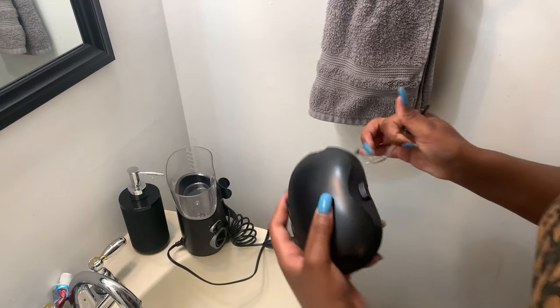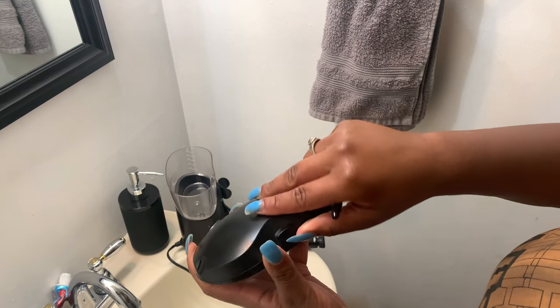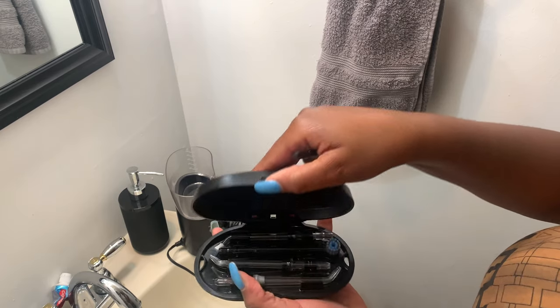This is the actual pump — you fill this tank up with water. It comes off easily so you can take the whole thing off to fill it with water, and that's where it pumps into. So basically you get the idea. Now the cool thing — let me set this down so you guys can see — this case right here actually holds all of the tips inside it.